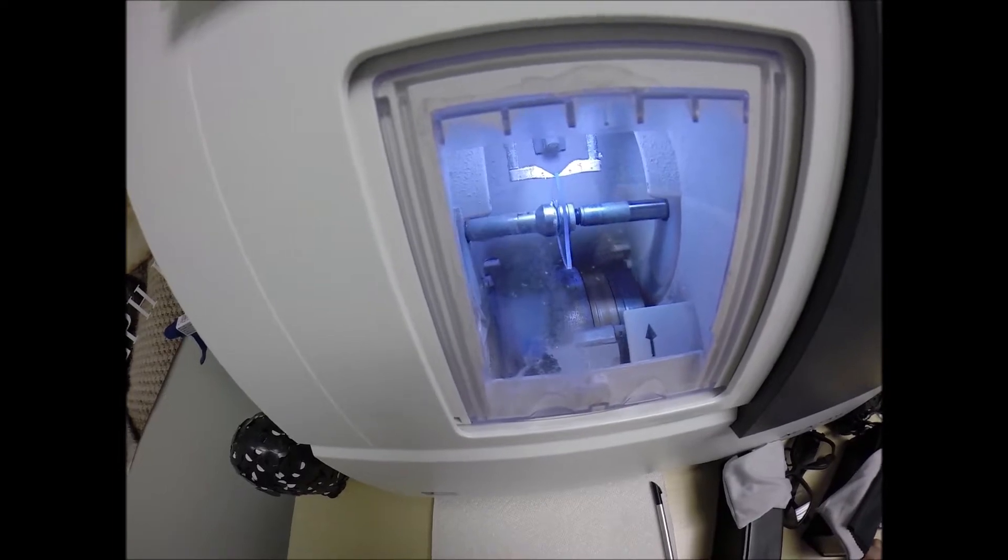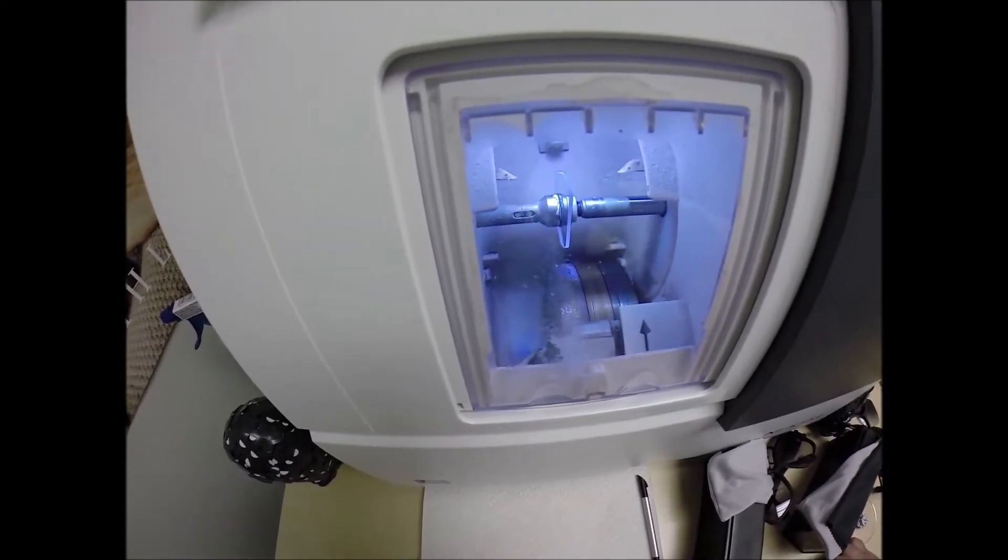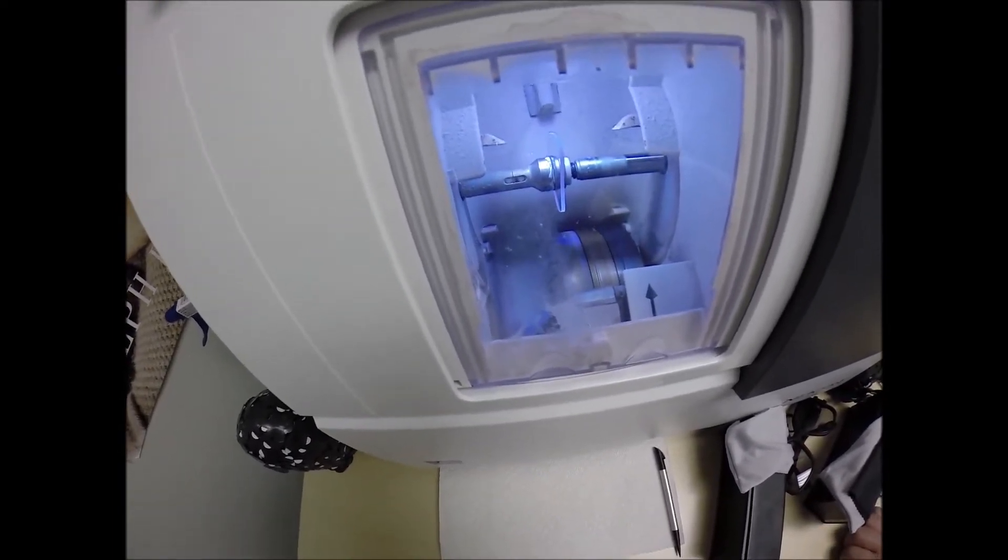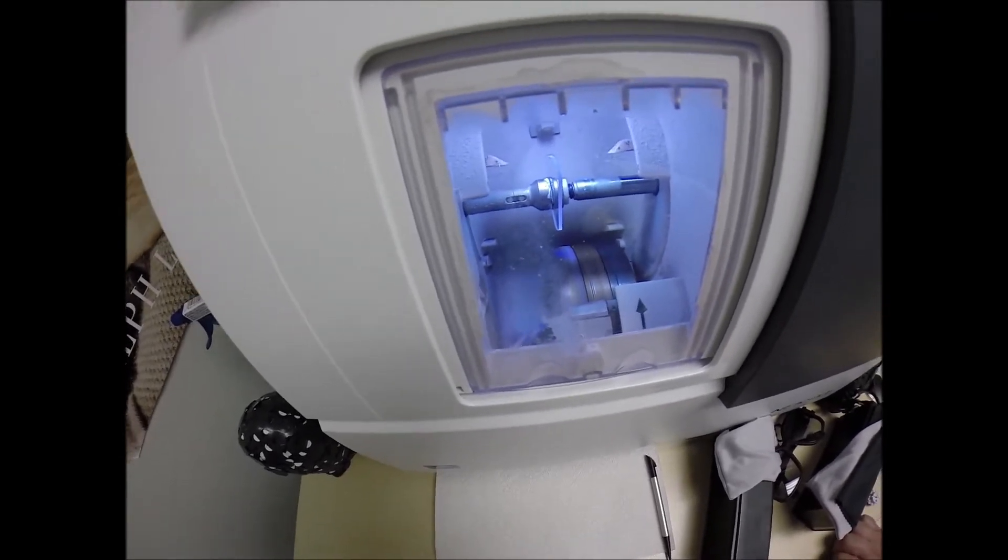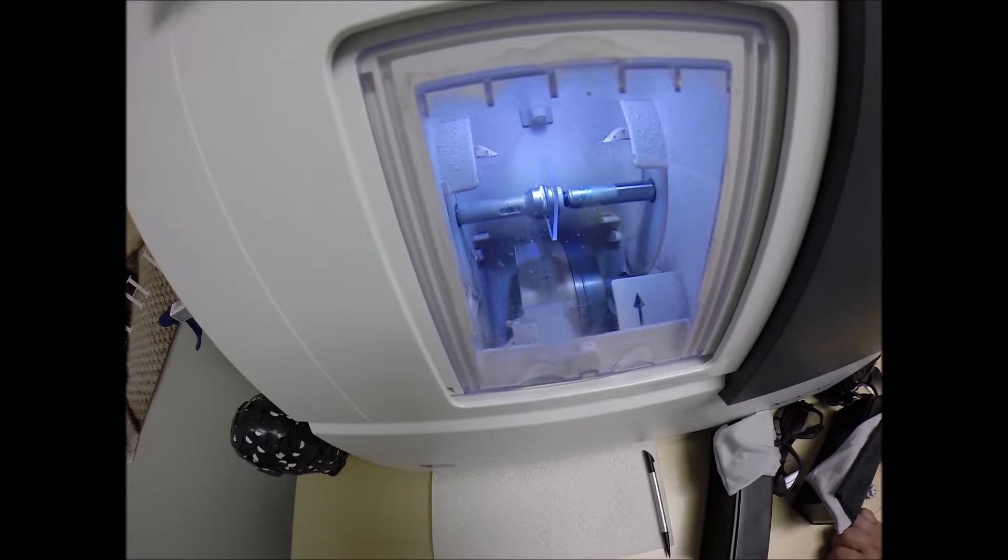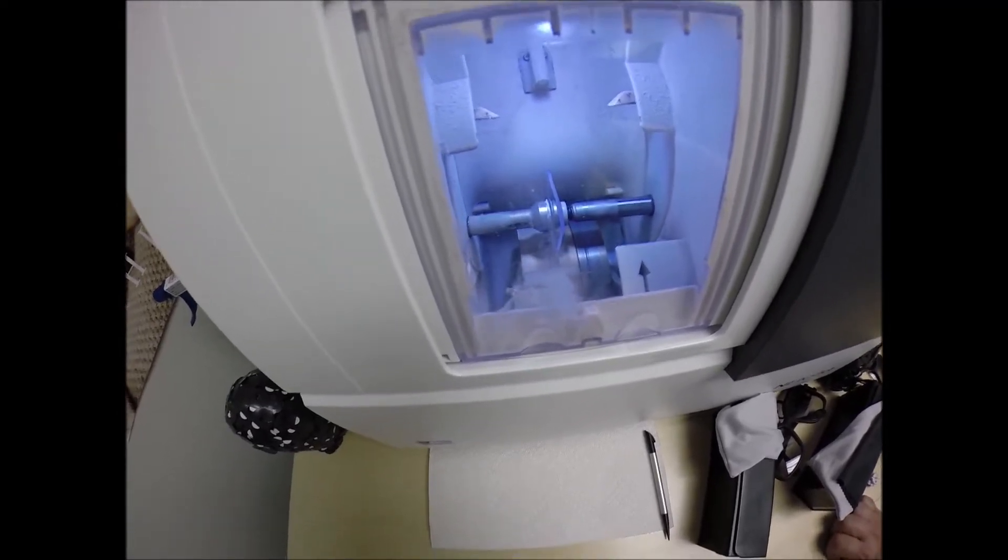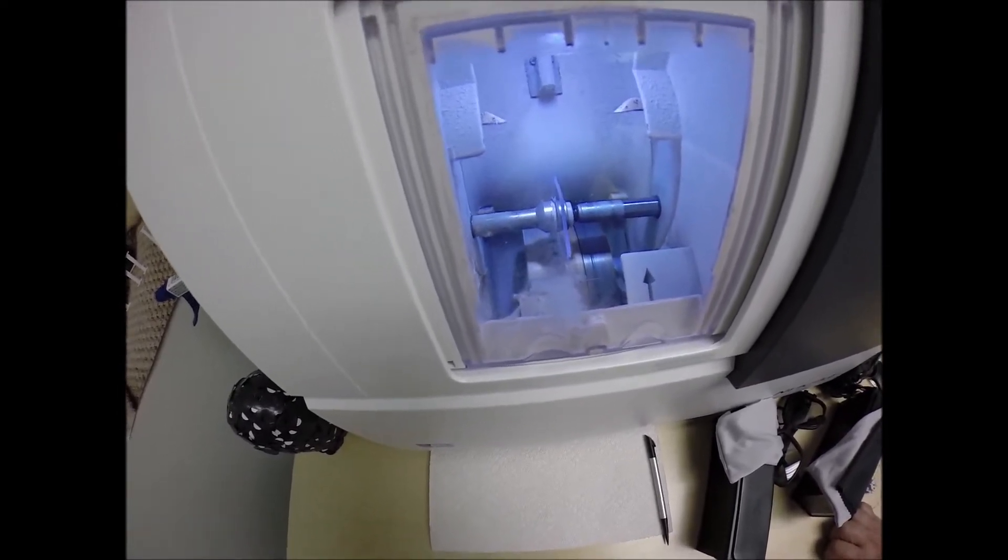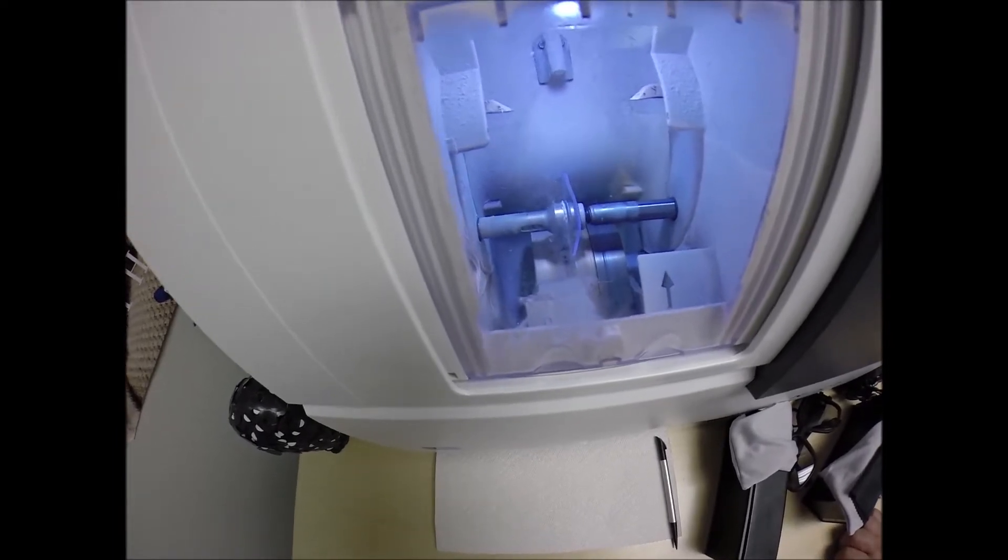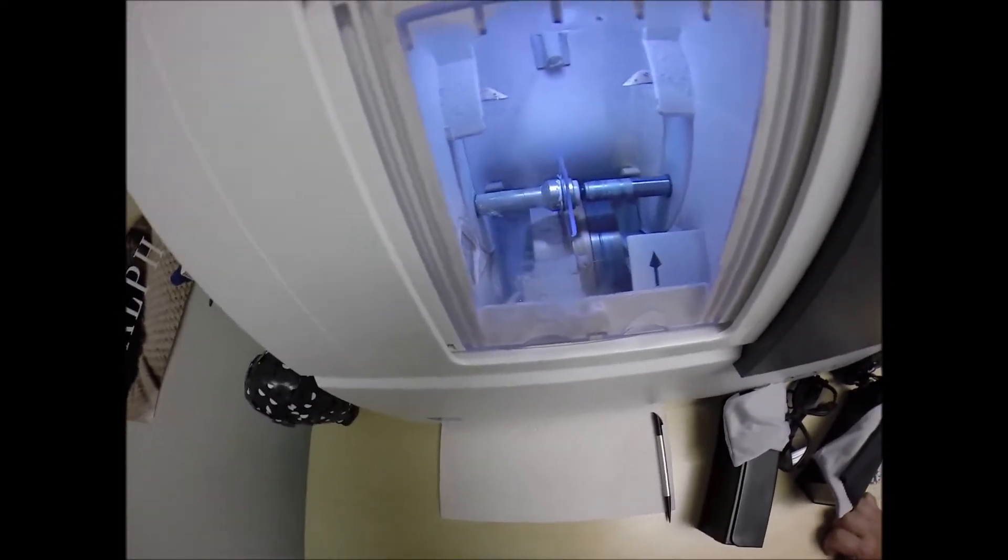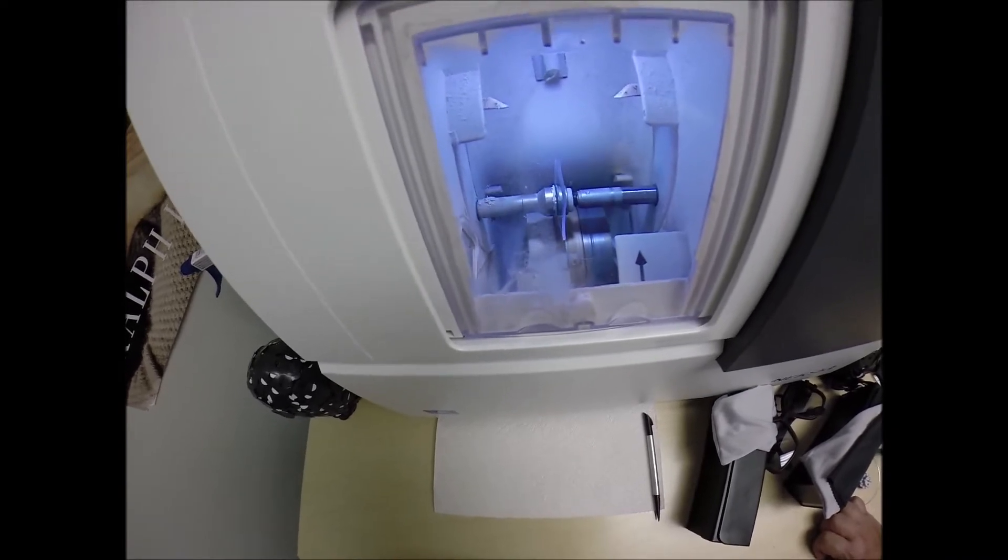It's also the same lens material that OSHA requires the factory workers or anyone who does a hazardous job to protect their eyes. Now these are not safety glasses, but it's the same lens material. It also has 100% UVA and UVB protection built into the lens. We know what the sun's harmful ultraviolet rays can do to your skin, where your eyes are eight times more sensitive than your skin, so you have permanent sunscreen for your eyes. Now if you notice, the edge is flat like a nickel. If I were to take it out now, it would stand up on the counter. It's about to drop down on the bevel wheel and get the V-shaped bevel, the knife-like edge.